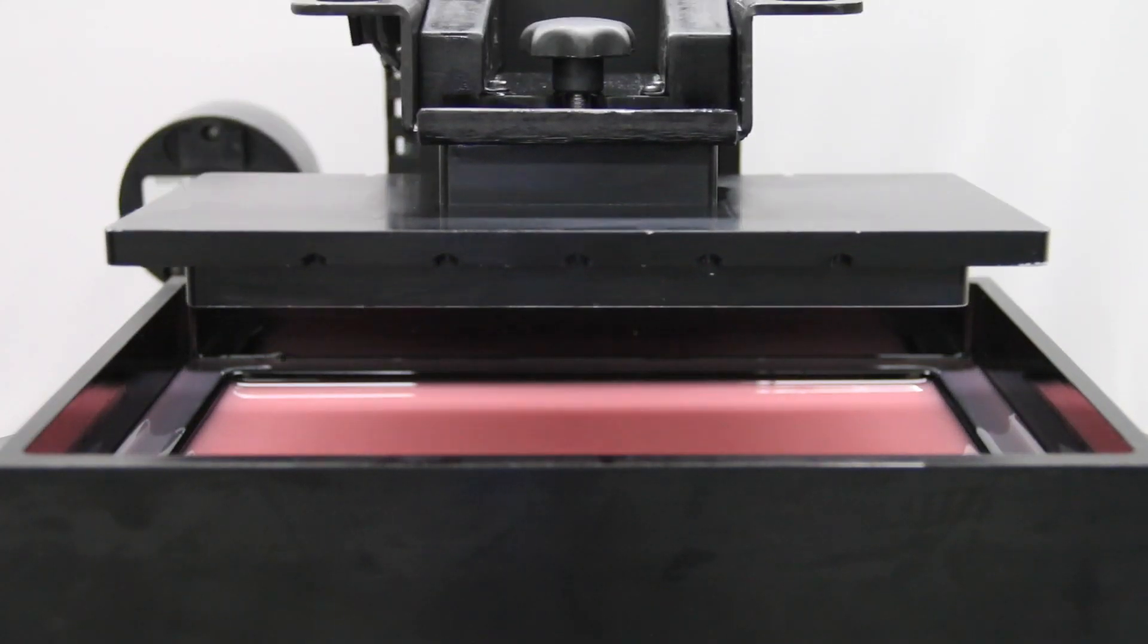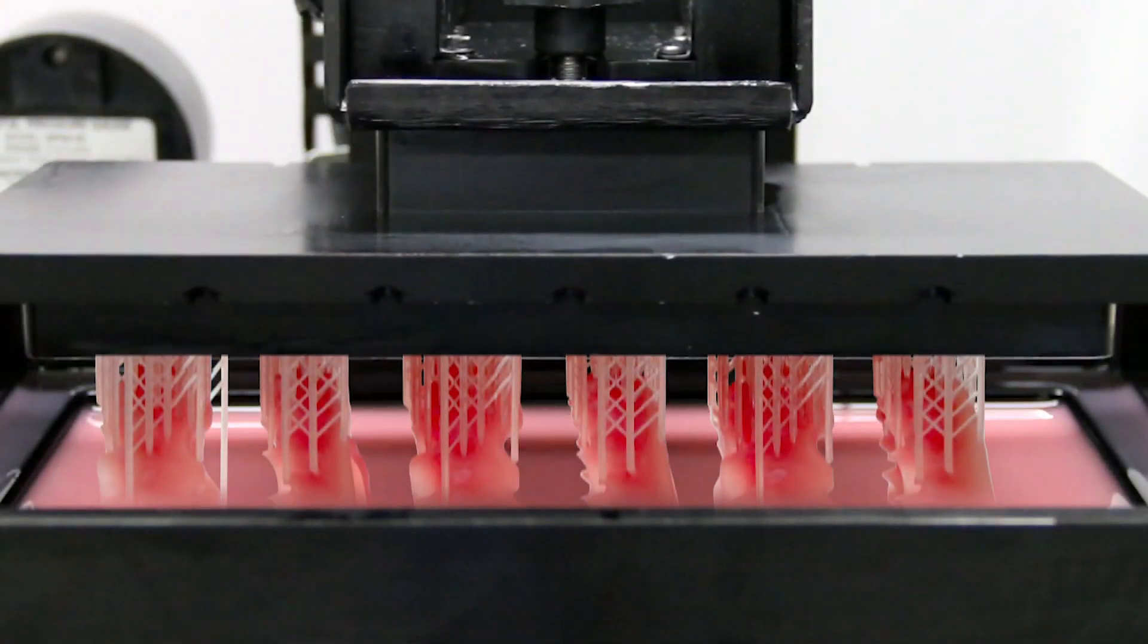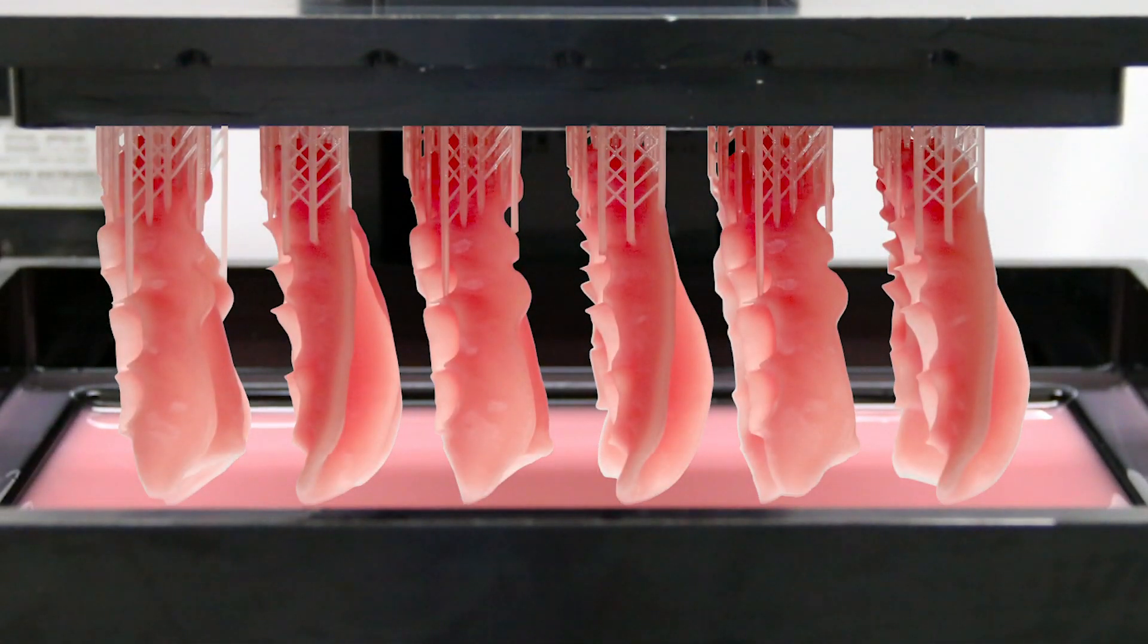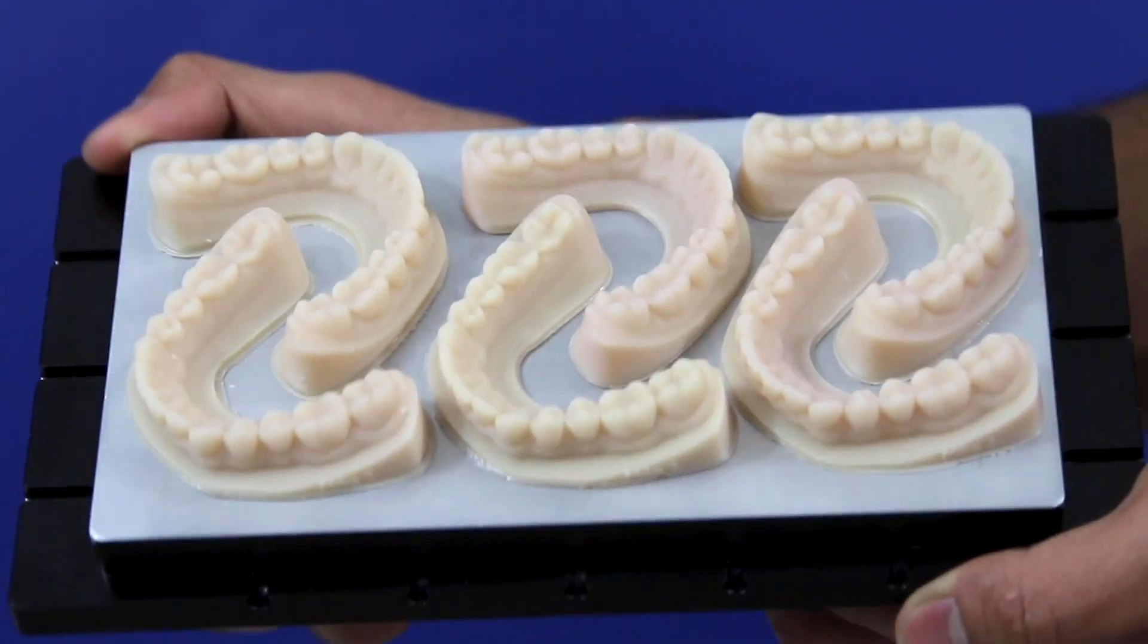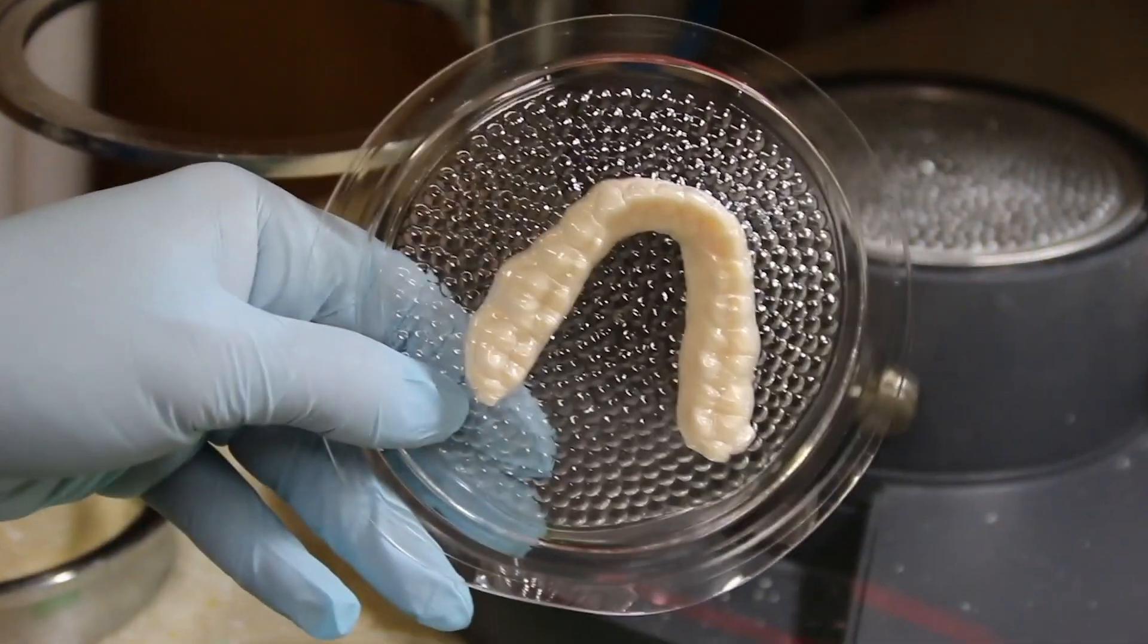Its expanded build platform enables high-volume output, allowing dentists to produce 10 dentures in under an hour, 6 orthodontic arches in 15 minutes.